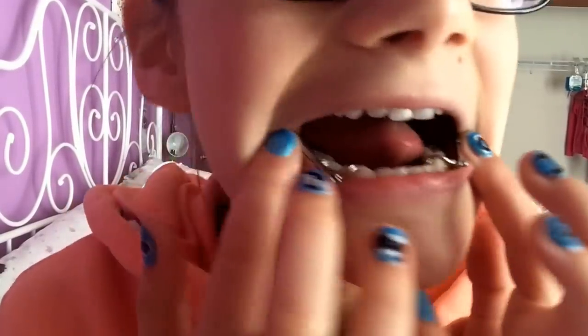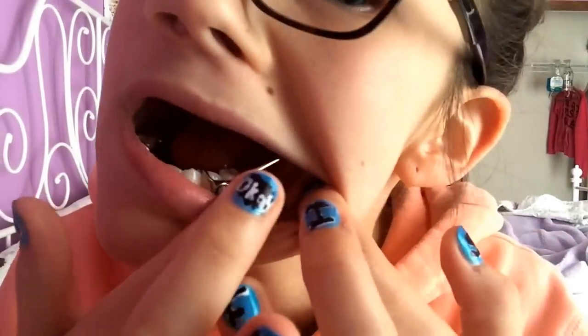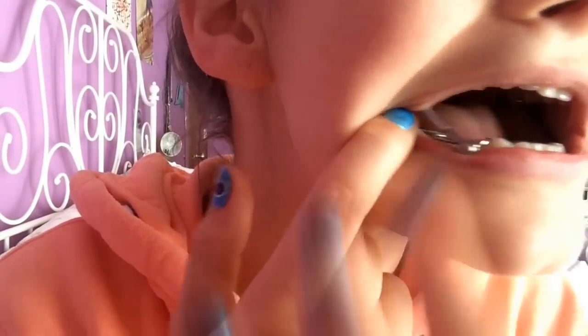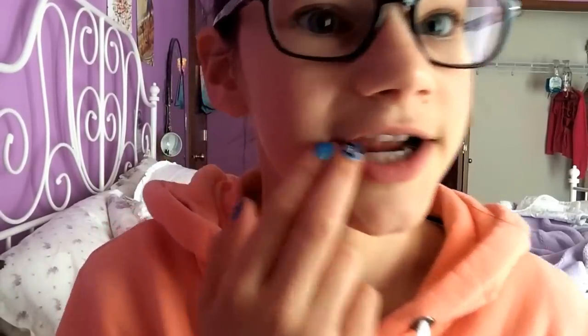It's like any orthodontic appliance made out of metal. They use orthodontic glue on it and pop it in your mouth. So I will show you what it looks like now. In the front, what you have there is the little bands that they have around your mouth. When I had an expander for the top to make it wider, I had the same type of bands but just around the top and nothing on the bottom. But it extends out, and you have a place where you can screw in the little pole. And then you screw in this pole right there. I'm sorry, that's really gross, but I'm just trying to show this info with you guys because I think I would find it really helpful. So basically, you have the band around your tooth which they use the orthodontic glue for, and then they have another piece of metal sticking out where you can screw in this little pole right here.